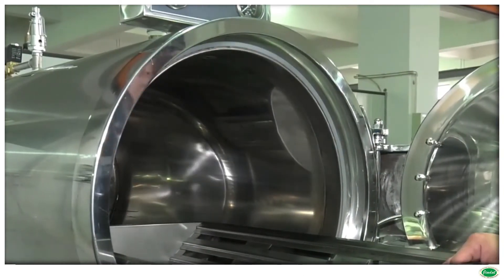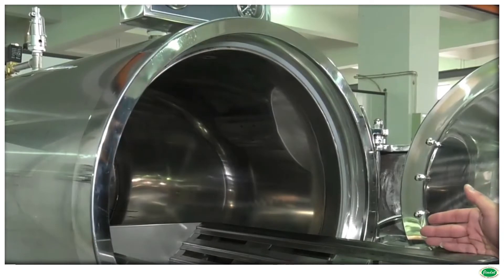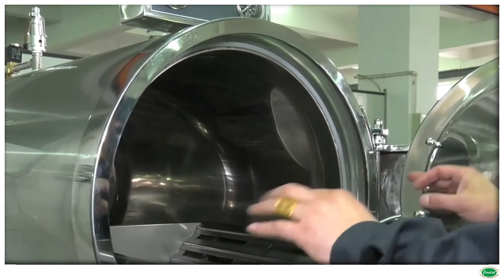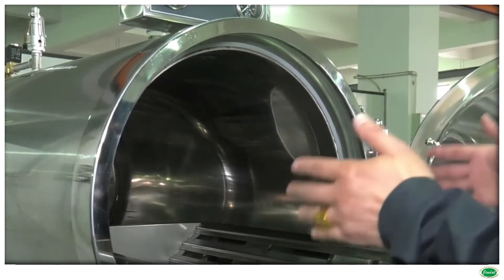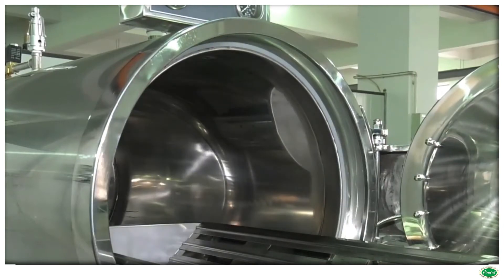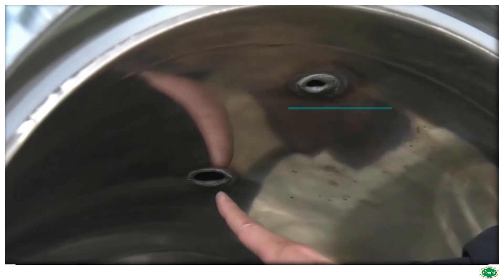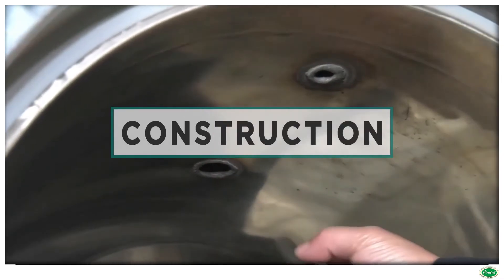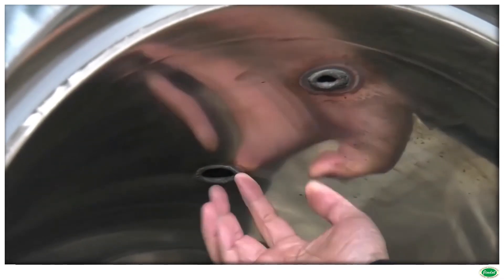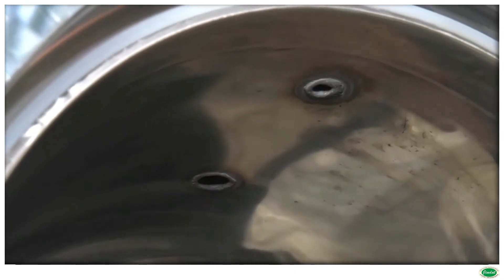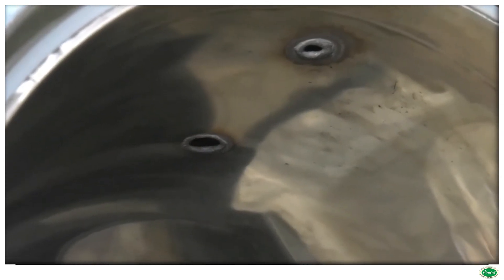Robust and rigid construction designed for all types of bulk sterilization commonly needed in medical, agricultural, and pharmaceutical institutions. The sterilizer is suitable for sterilizing hospital dressings, linen, rubber, plastic goods, surgical instruments, glassware, utensils, and more.